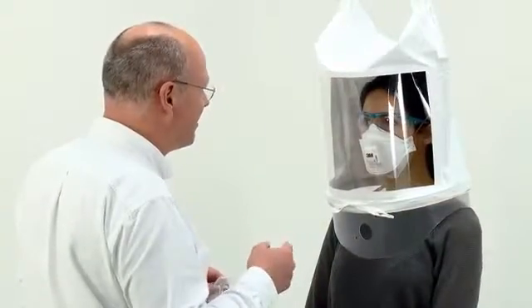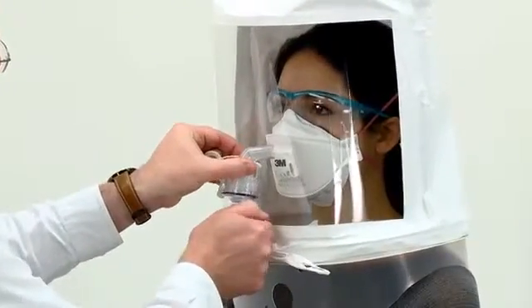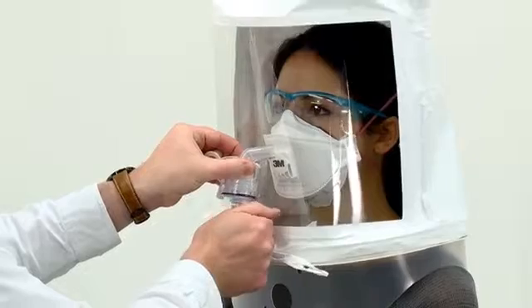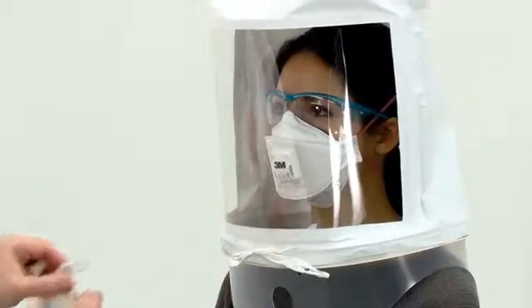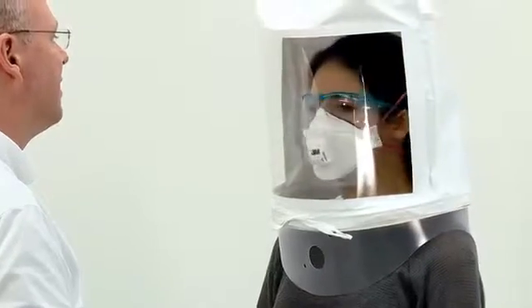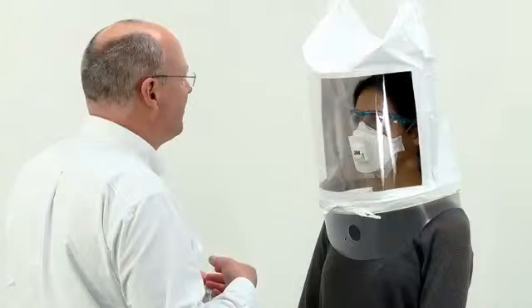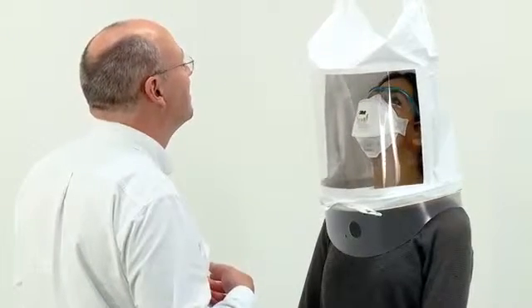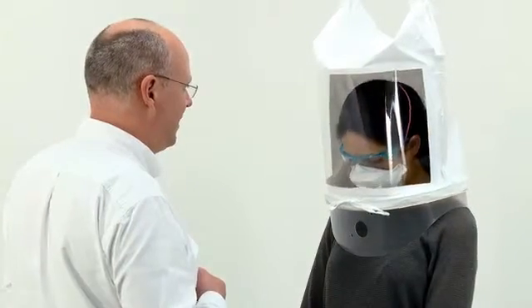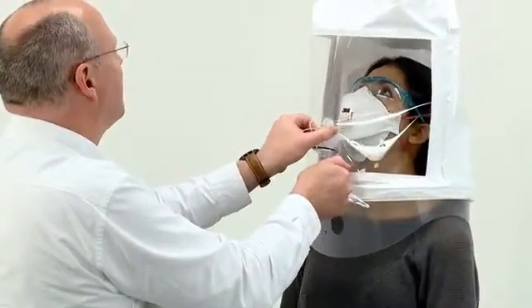After one minute of deep breathing, ask the subject to start turning their head from side to side in slow, deliberate movements, pausing slightly to inhale at each extreme. Top up the concentration every 30 seconds. After one minute of this exercise, ask the subject to switch to moving their head up and down, inhaling when the head is up. Continue to top up the concentration every 30 seconds.